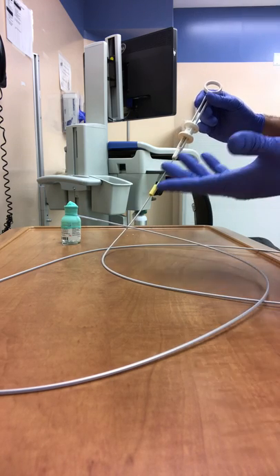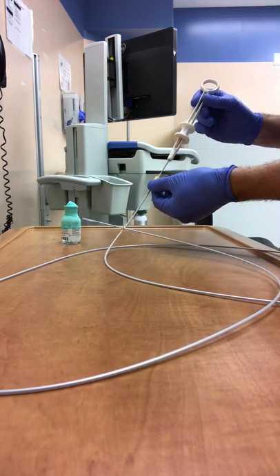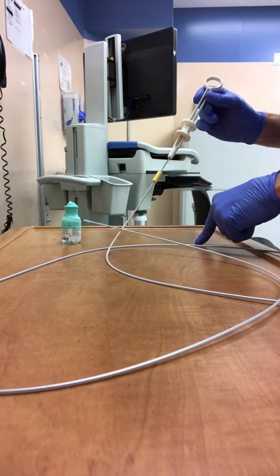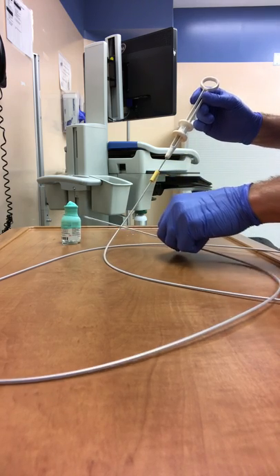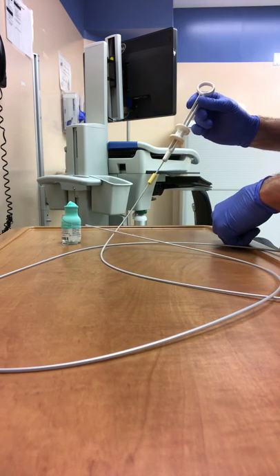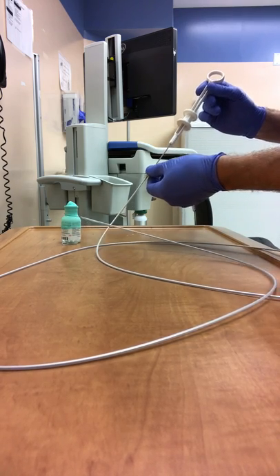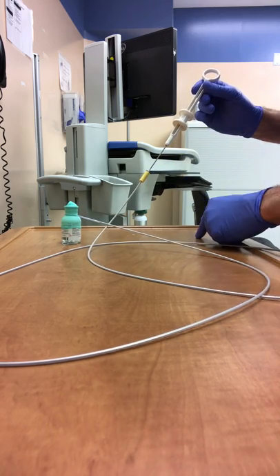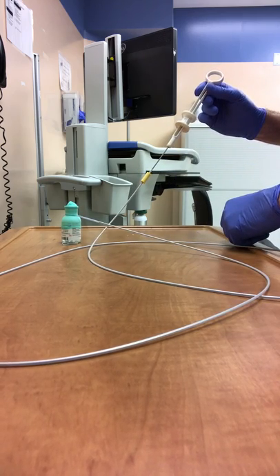If the physician would like to reposition the loop, you can still reopen a little bit by pushing the handle back towards the yellow tab. The physician can then use the endoscope to replace the loop around another position around the stalk of the polyp. Again, you can then pull the handle away from the yellow tab to hold your position once again.